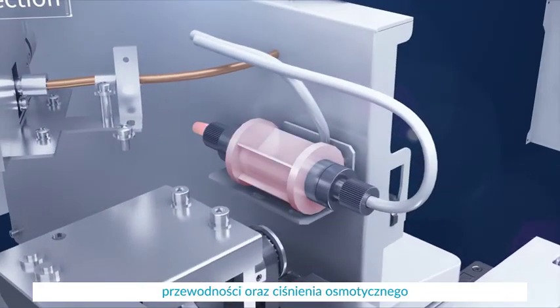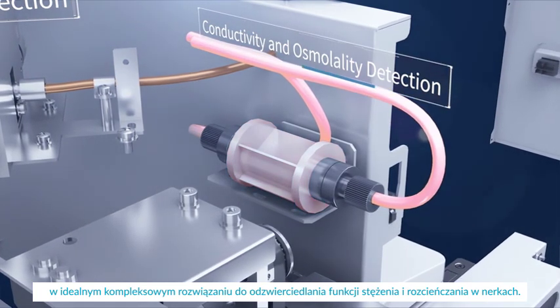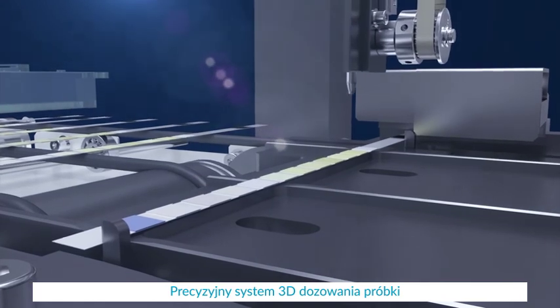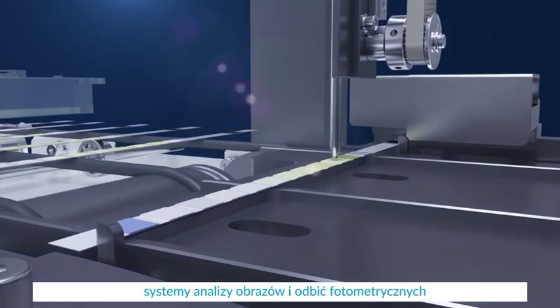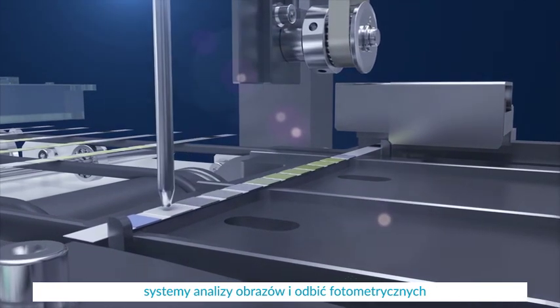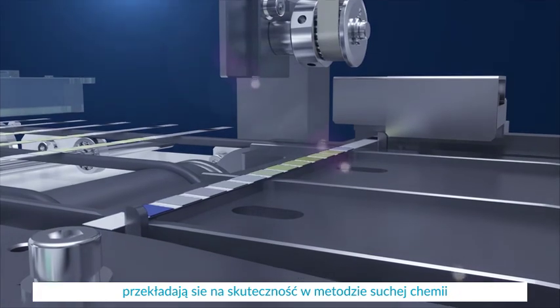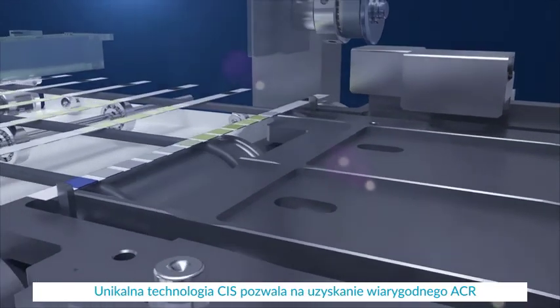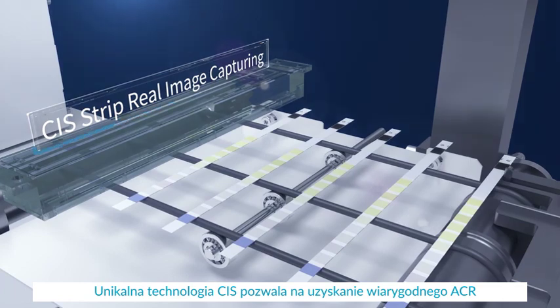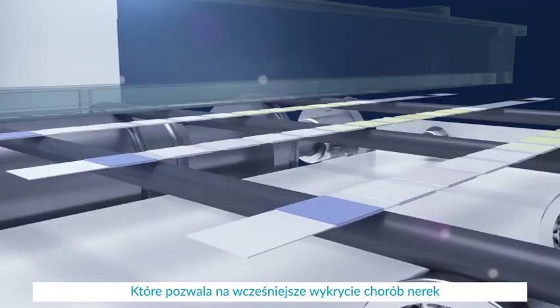It also measures conductivity and osmotic pressure, offering an ideal comprehensive solution for reflecting the concentration and dilution function of the kidney. Precise 3D sample dripping technology, image analysis, and reflectance photometry contribute to accuracy in dry chemistry. Unique CIS (contact image sensor) technology helps obtain more reliable ACR, which is able to screen chronic kidney disease two to three years in advance.